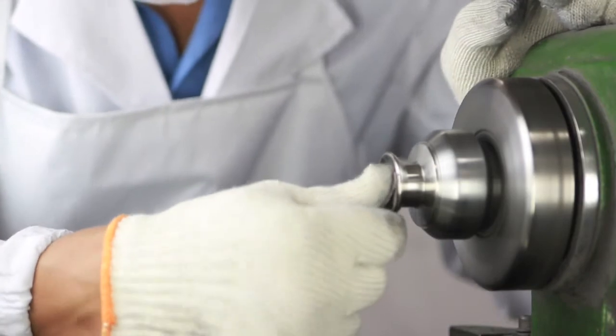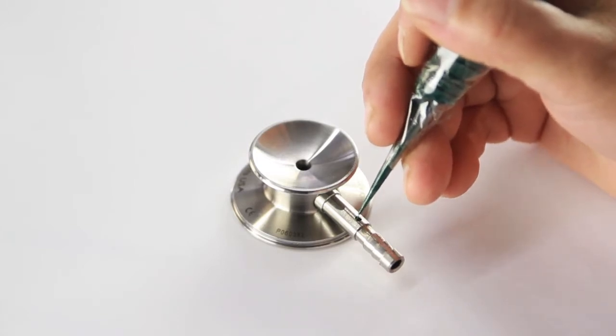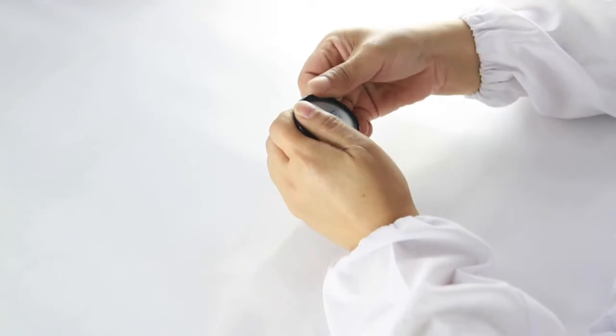Because it's handcrafted in our own production facility and has been since 1971, we can offer a lifetime warranty on the entire stethoscope. That means you can use your stethoscope every day confidently. Our free parts for life program will send out free replacement parts if the diaphragm retaining ring or ear tips should wear out.